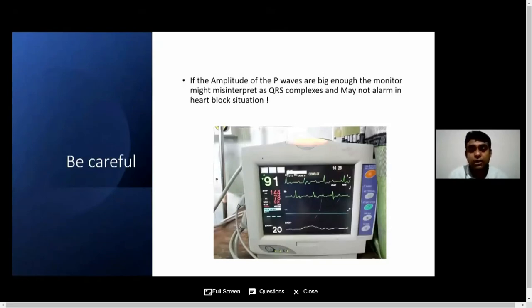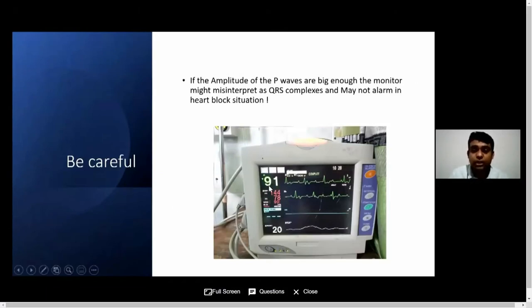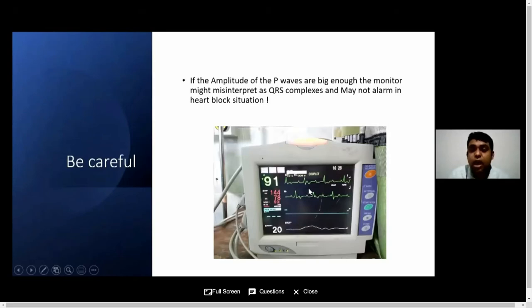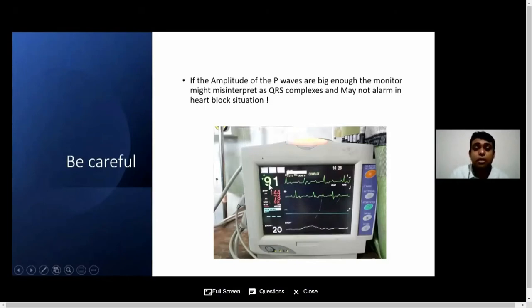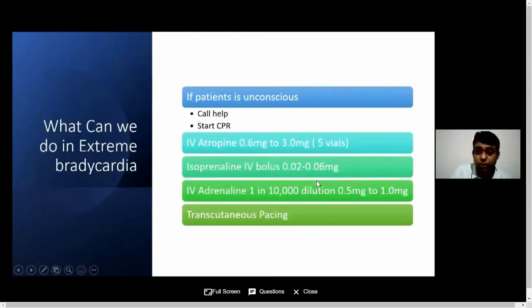Our monitors sometimes don't pick up these abnormalities. Look here — this patient's monitor is showing a heart rate of 91, but when you get the ECG, you can see the patient is in complete heart block. There is no way whatsoever that patient is having a heart rate of 91. So just by looking at the monitor, you may be falsely reassured that the patient is having a very good heart rate, but it is not the case. These are the things you need to get yourself trained on.